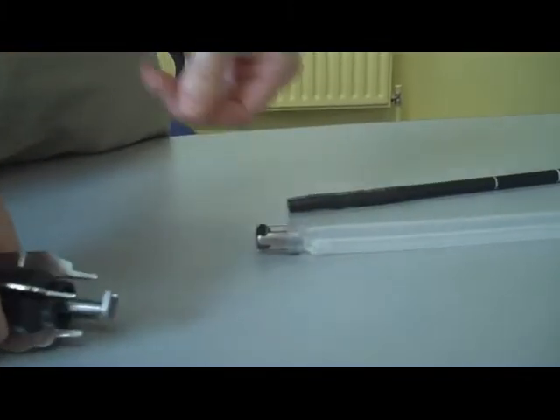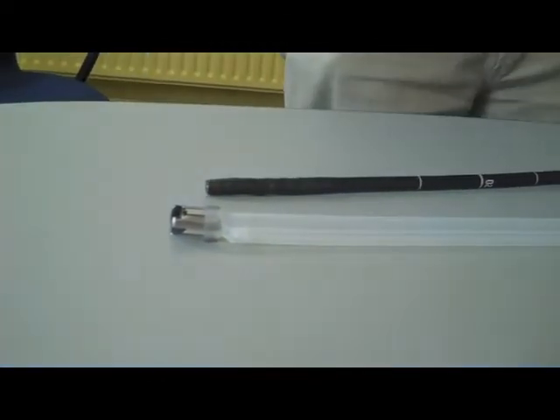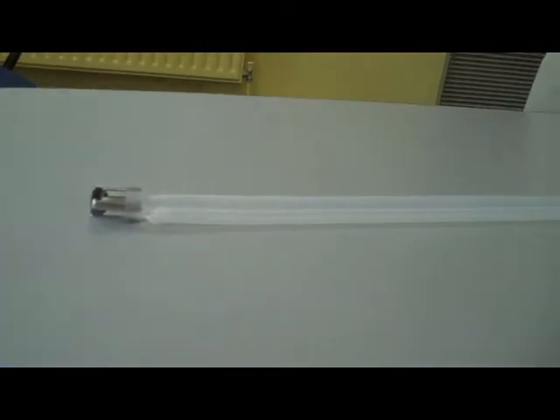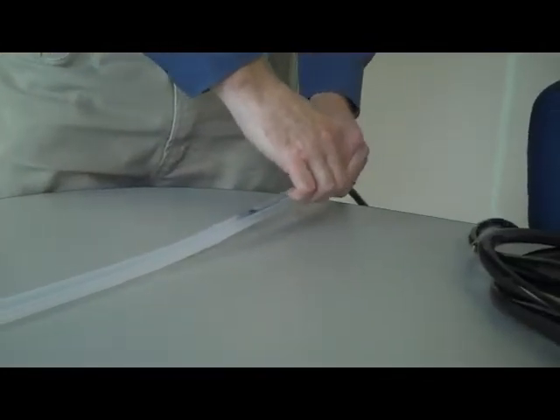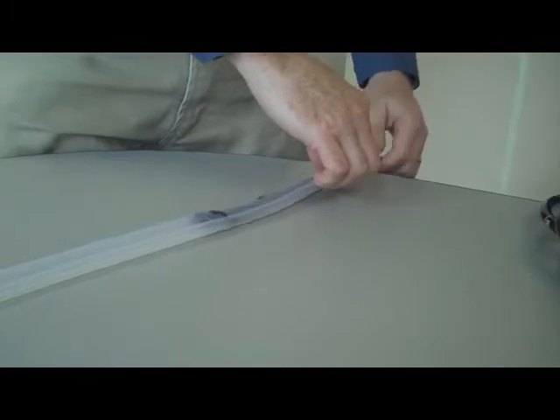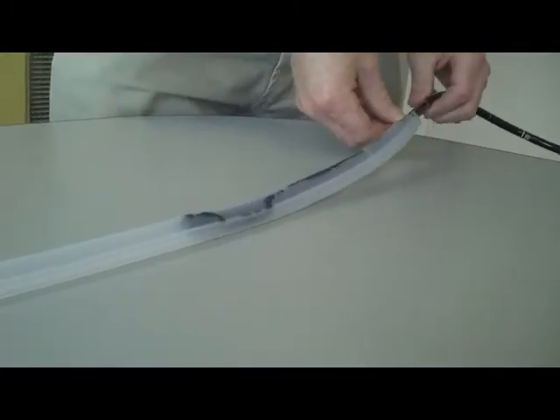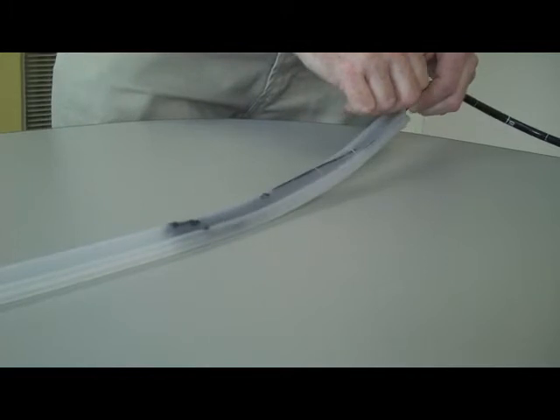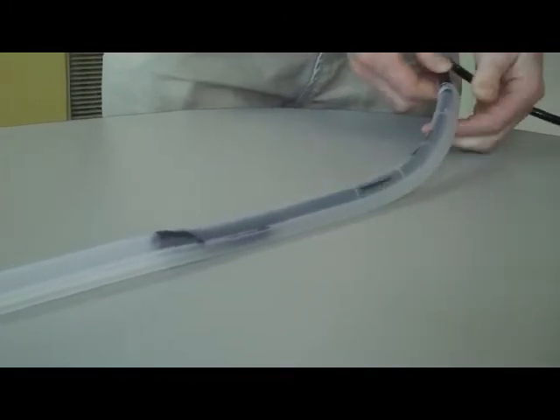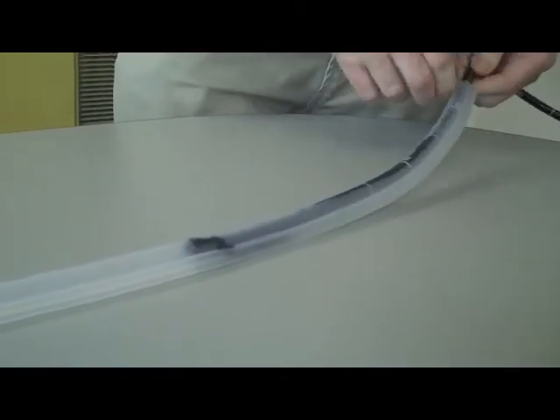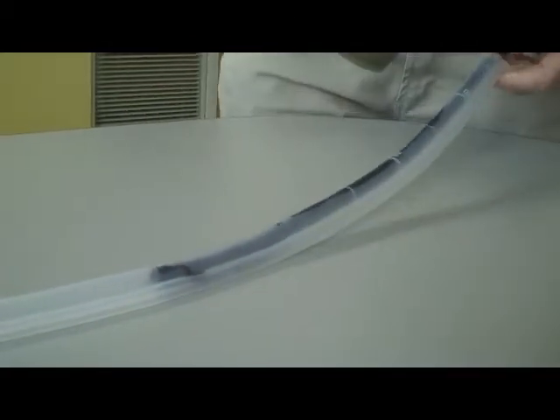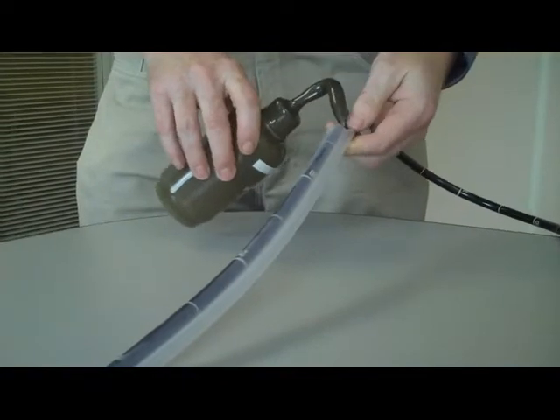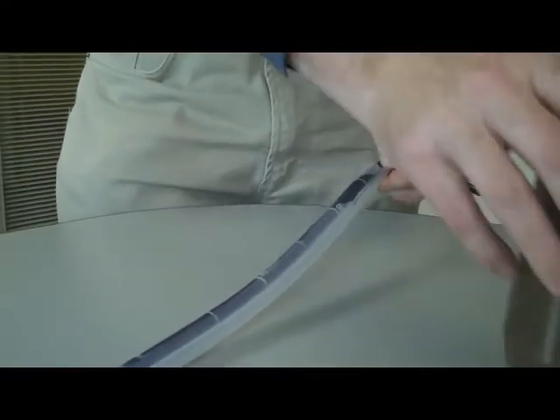To insert the endoscope, wipe it down with alcohol and put it down the endoscope channel of the ECD. If you find it difficult to advance, you can pour some alcohol down the channel alongside the scope. Keep pushing.